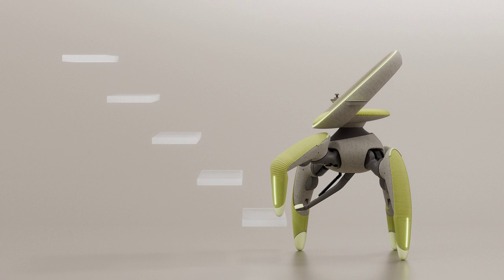Stair Climbing: The chair intelligently assesses stair height with its front legs before carefully pushing upward with the rear limbs. Vehicle Access: The ability to lift the user allows for easy access to cars and other elevated platforms.